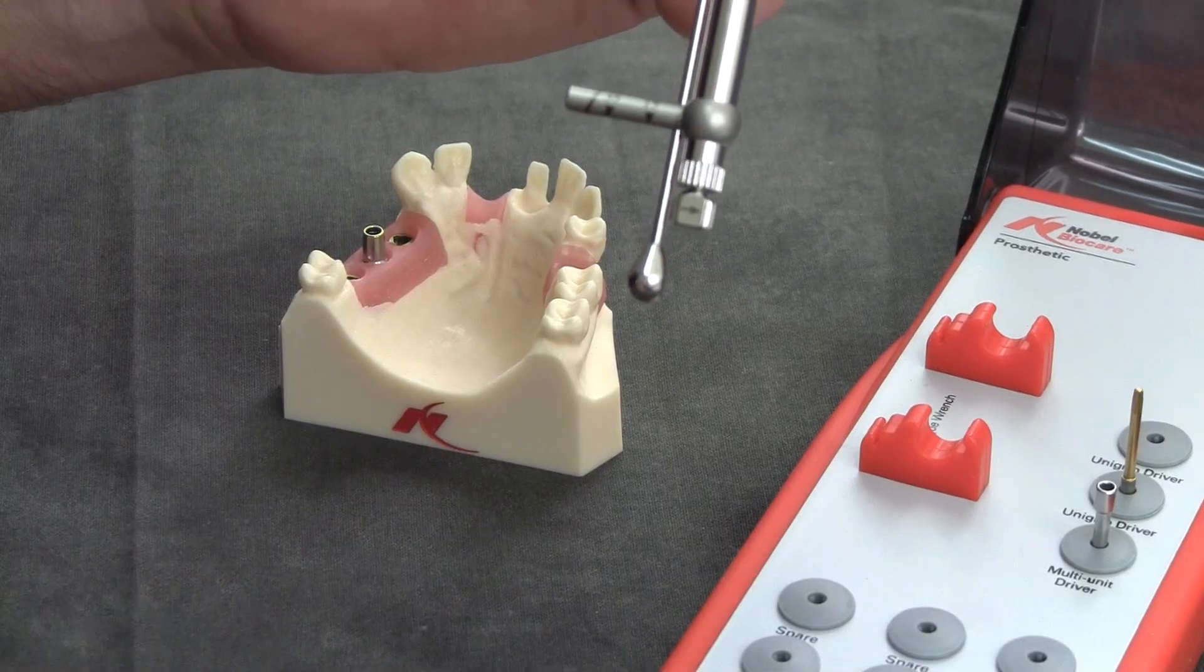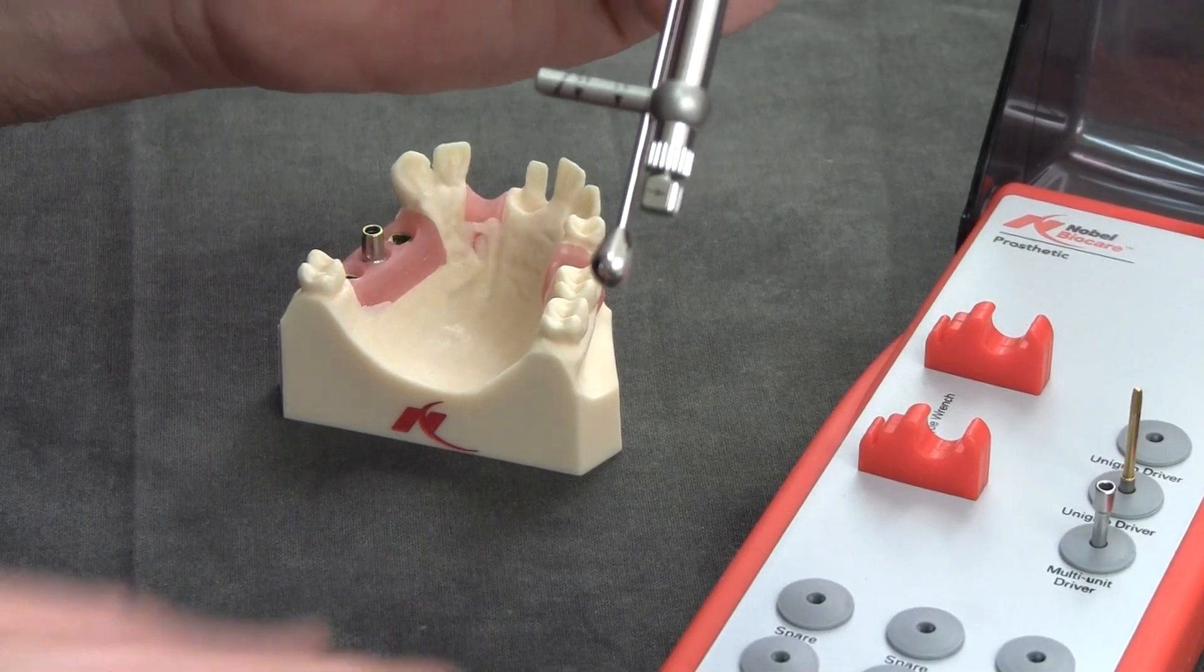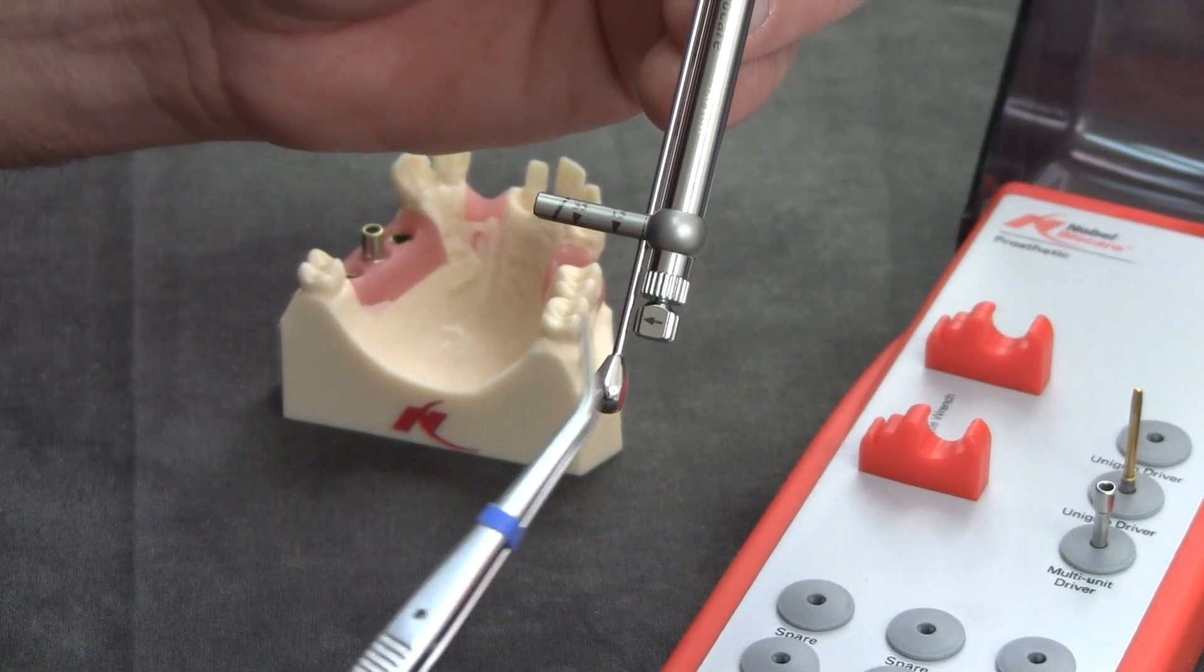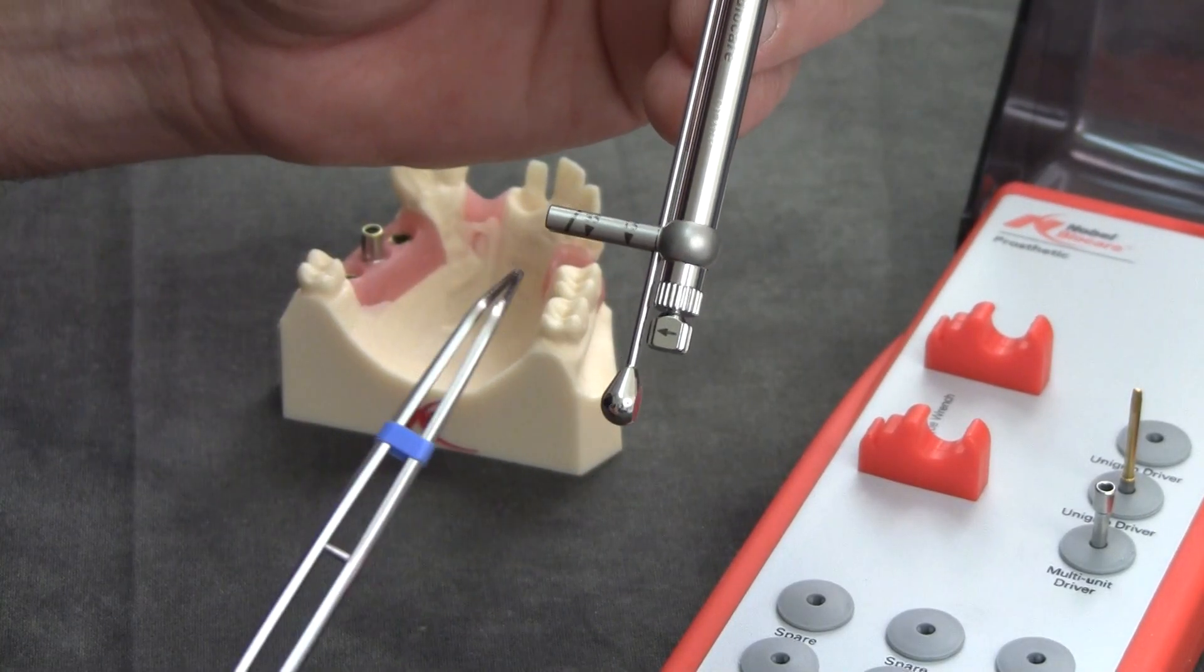Right now it's facing incorrectly. It's facing away from me. I should pull out and rotate it until the arrow is now facing in this direction towards the spring arm.